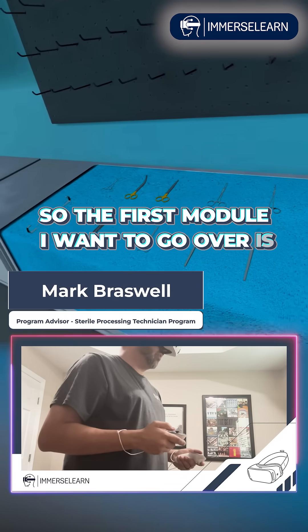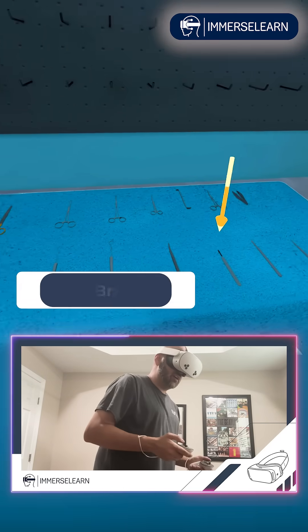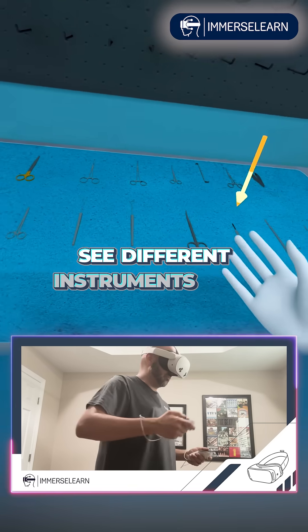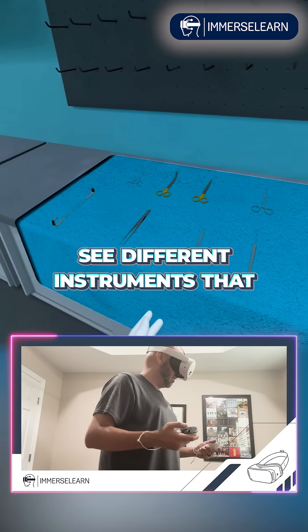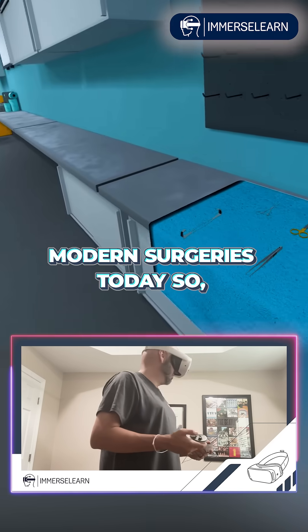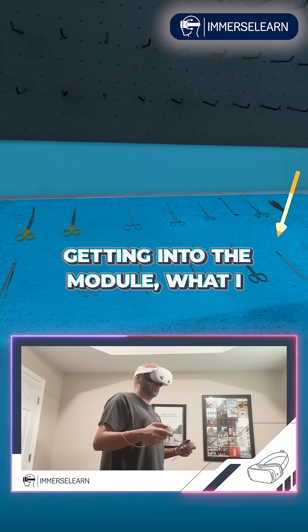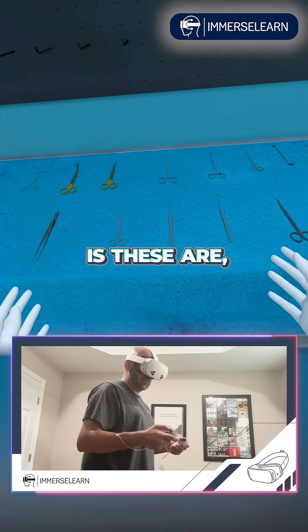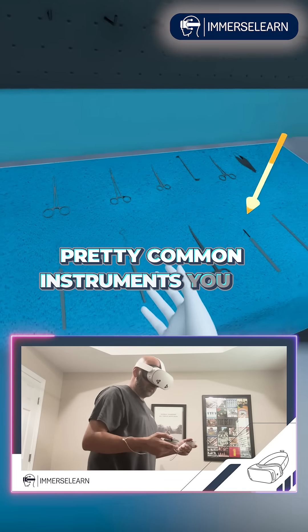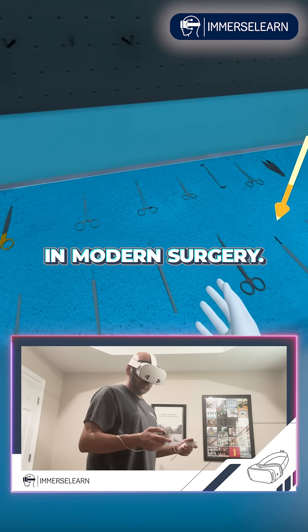The first module I want to go over is instrument selection, and I think this is probably one of my favorite ones because it allows me to see different instruments that you would use in modern surgeries today. These are pretty common instruments you're going to see in modern surgery.